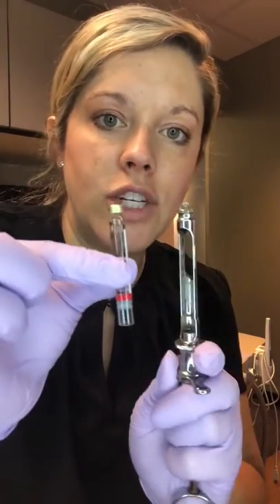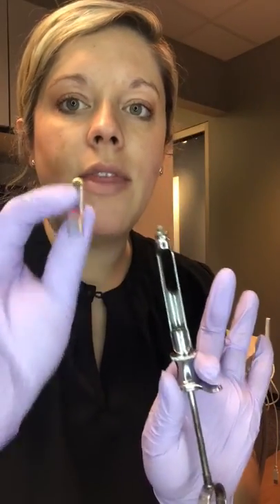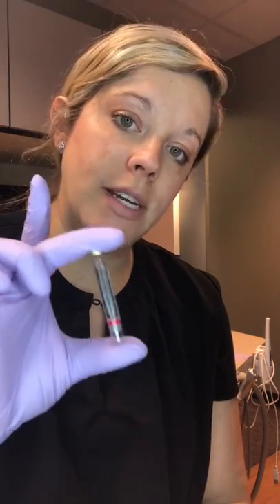Now it's disengaged. In order for it to come out, I have to pull and then it will slide out. This also will go in the sharps container. It is glass, so if we put it in a regular trash can, it can break and cut whoever is handling the trash, or pierce through the trash bag. So any glass, any sharps, right into the sharps container. That is our basic unloading of the syringe.